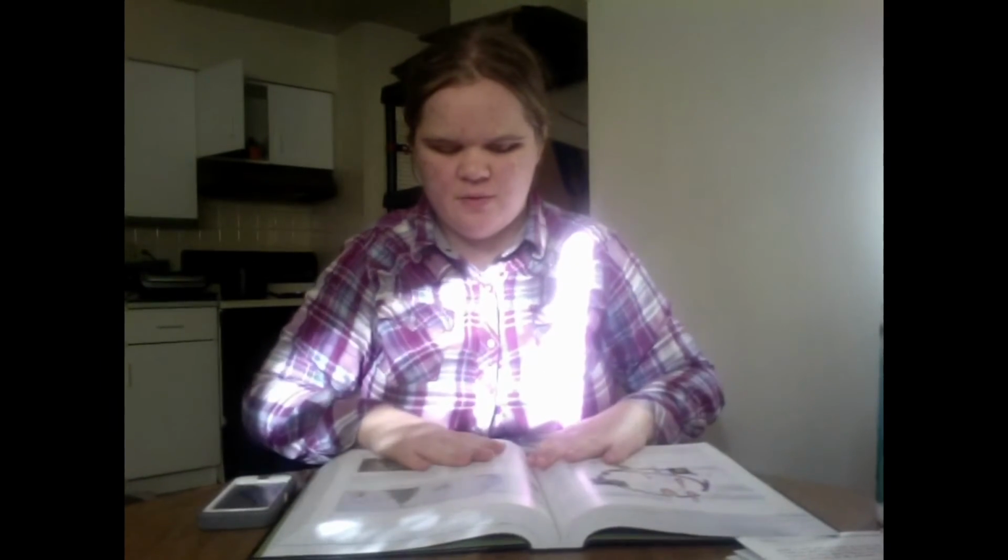If you're a student like I am, you have textbooks, and sometimes if you go to get a book from the library, or you just want to know what some particular page in a textbook says, you're going to need to scan it. Now, with the KNFB Reader, that can be easily done. I have flipped to a random page in this textbook. I don't even know what this page says.